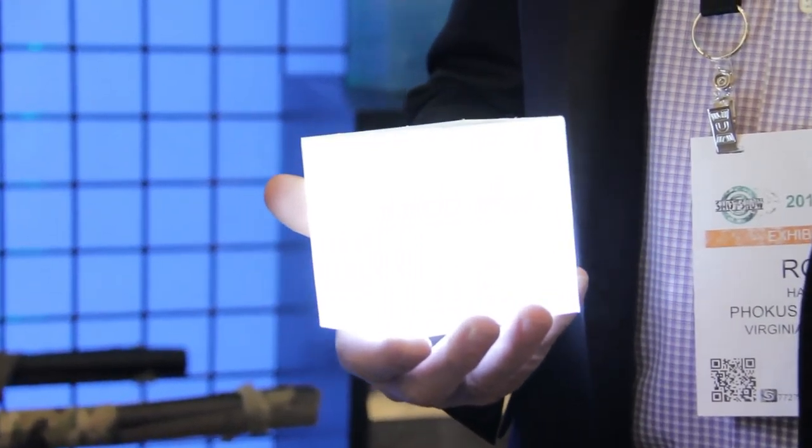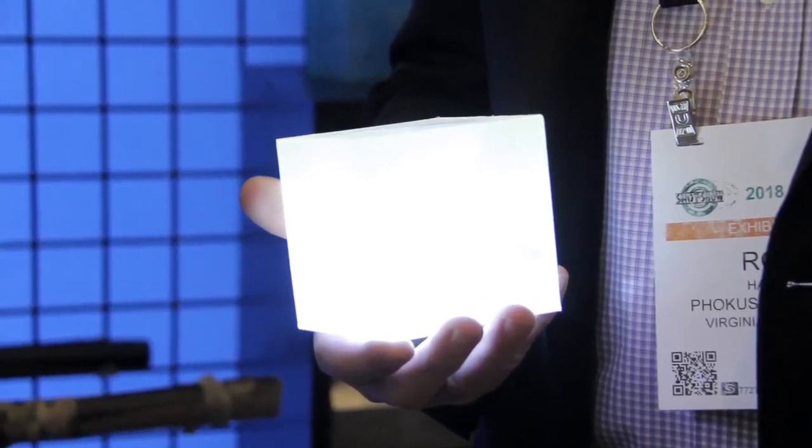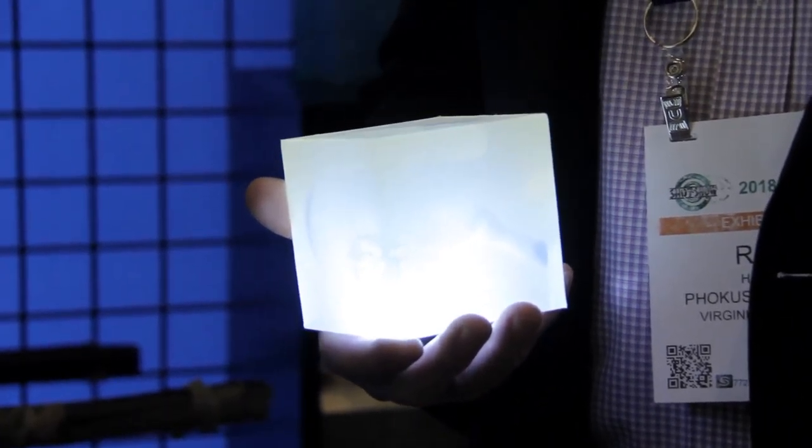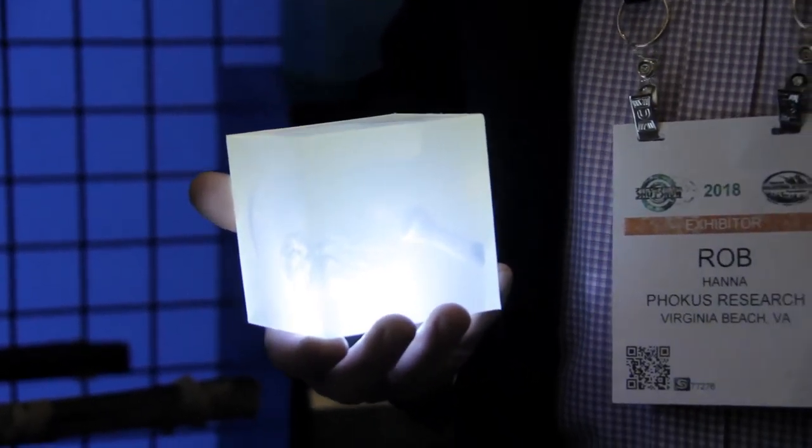We created this device so that the classes that are going on around the country - bleeding control, active shooter response - when the students start discussing wound packing, they actually have a training tool.